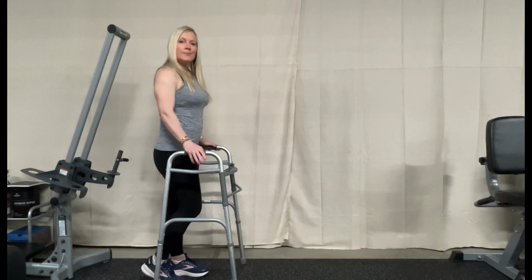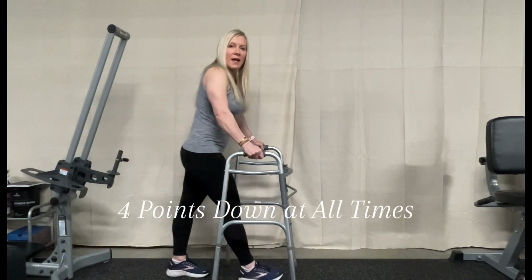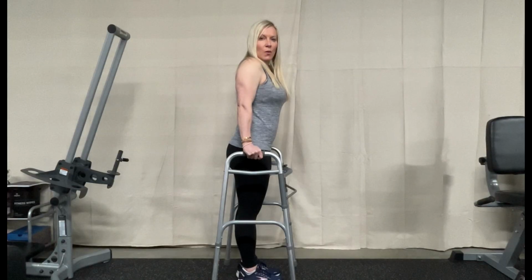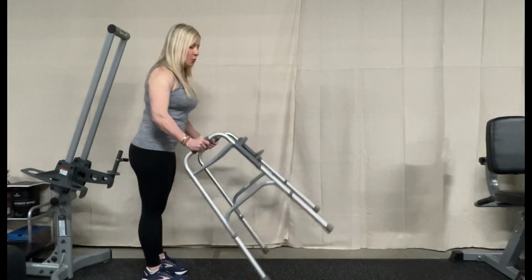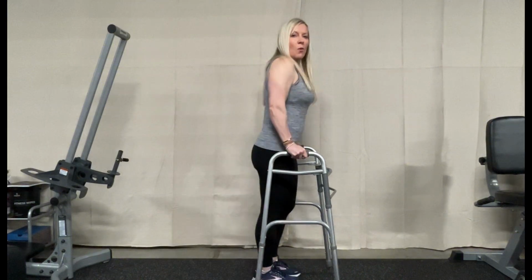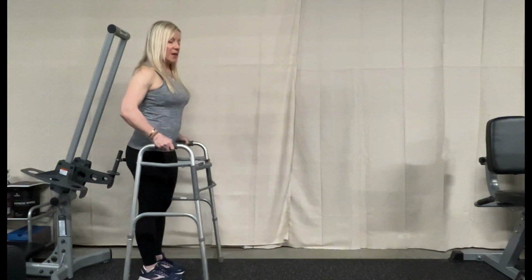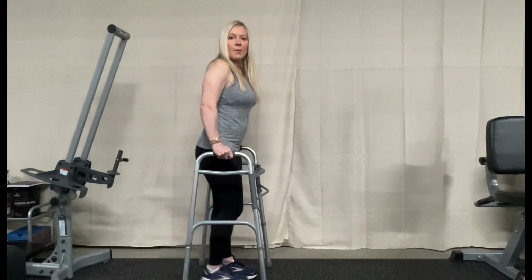With this one, this has to be advanced. We move it forward, we place all four points down, and we step up into it. A very common problem with the walker is people will put two points down and they walk into it. You want to make sure that we place all four points down and then we step up into it.